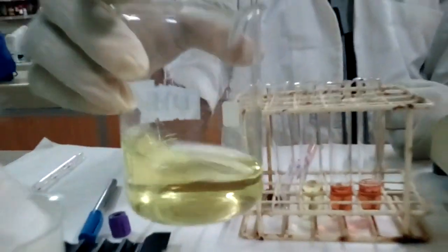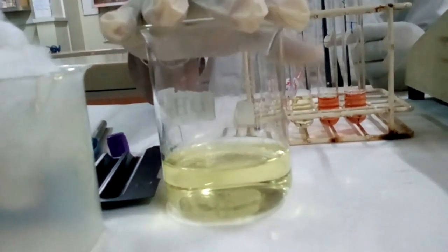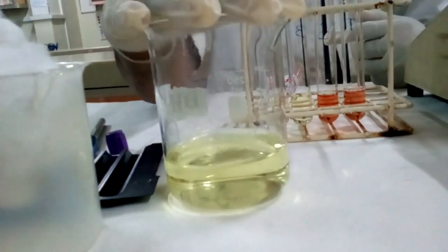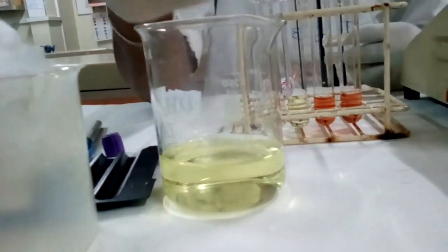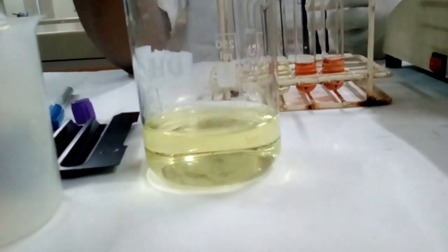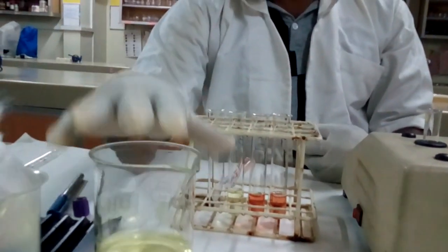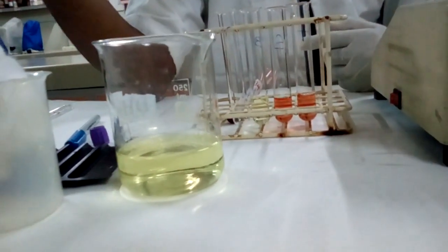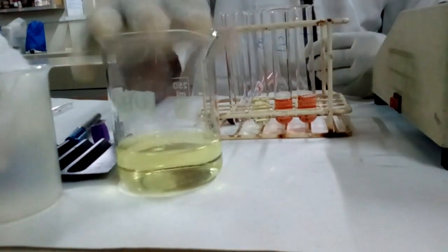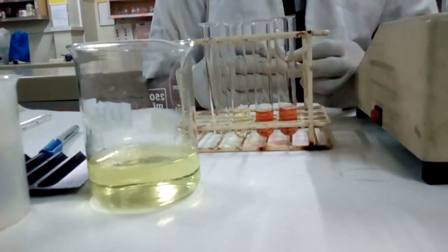This Drabkin reagent is very important. Why? The color of this is somewhat pale yellow, somewhat greenish yellow actually. The pH is going to be around 7.2, 7 to 7.4 is ideal, and the solution must be clear, no turbidity should be there. And also if we take the absorbance of this at 540 nanometer against distilled water, it has to be 0. If it indicates some amount of absorbance, we have to discard this solution and prepare a fresh solution, and we can use the fresh solution if it also does not have absorbance against distilled water.